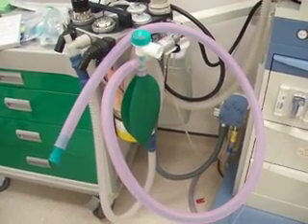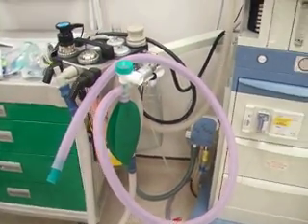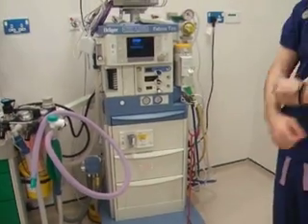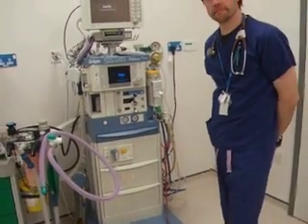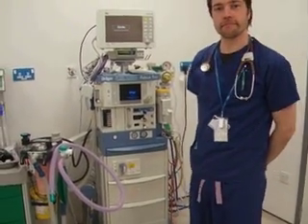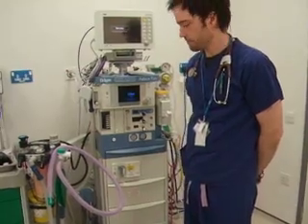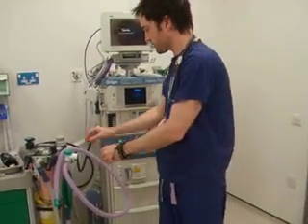Bain circuit check. Can you describe the breathing circuit connected to this anaesthetic machine?